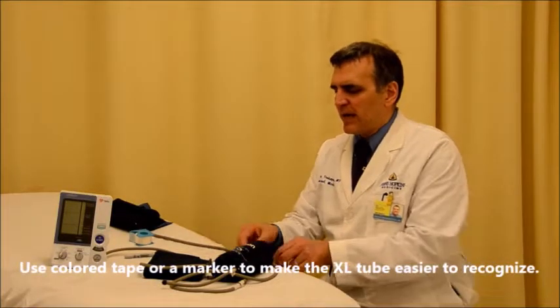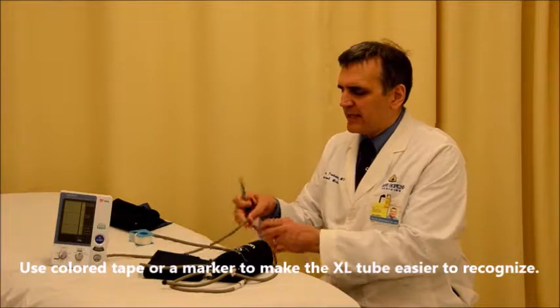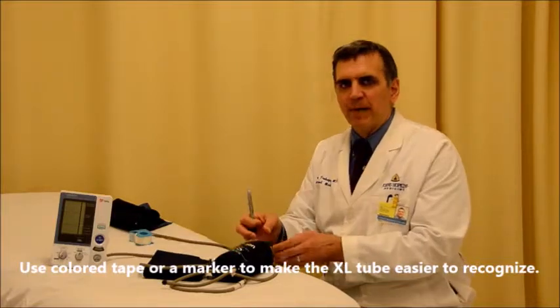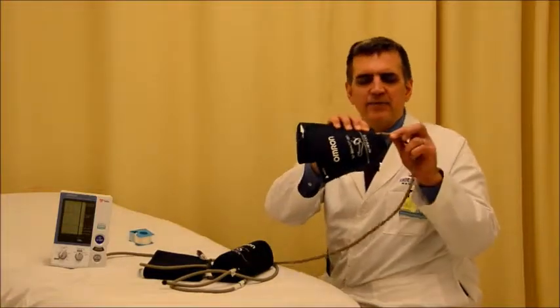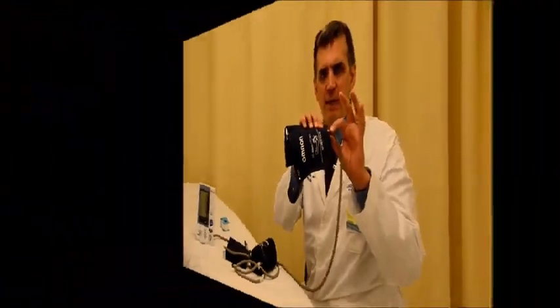We don't want to use this tubing for the extra large cuff with any of the other cuffs, so I take a sharpie and write XL on the tubing just to remind people that this is only to be used with the extra large cuff. And you should never disconnect the extra large cuff from the tubing up here.